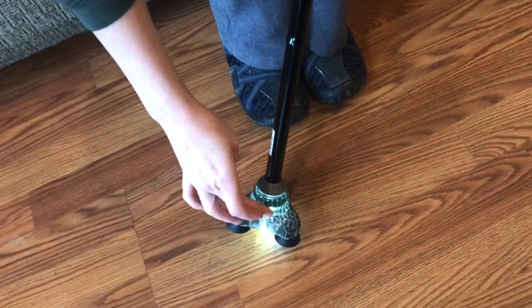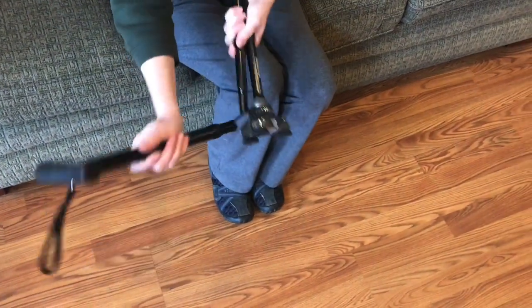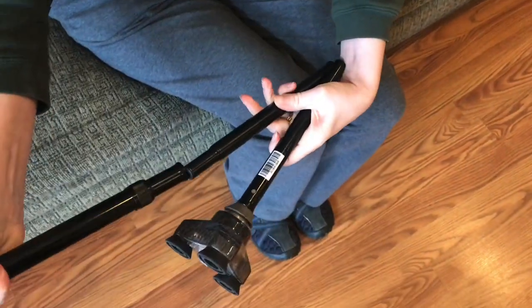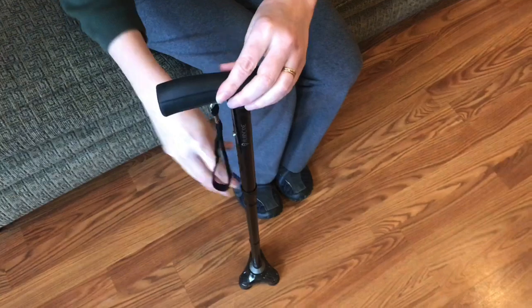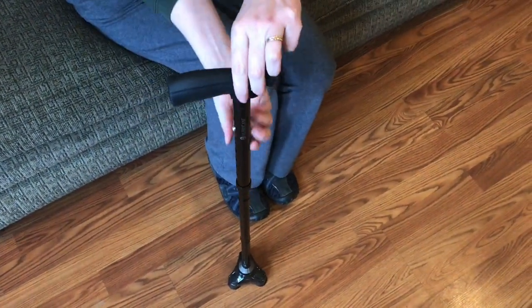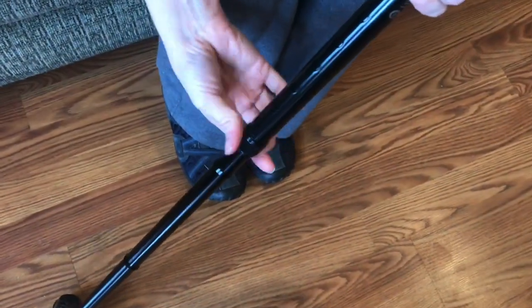There's a simple turn on/off switch there, and this is also collapsible. So it's very portable and easy to carry around with this Hurry Cane, and as you can imagine it is adjustable too for whatever height you need.